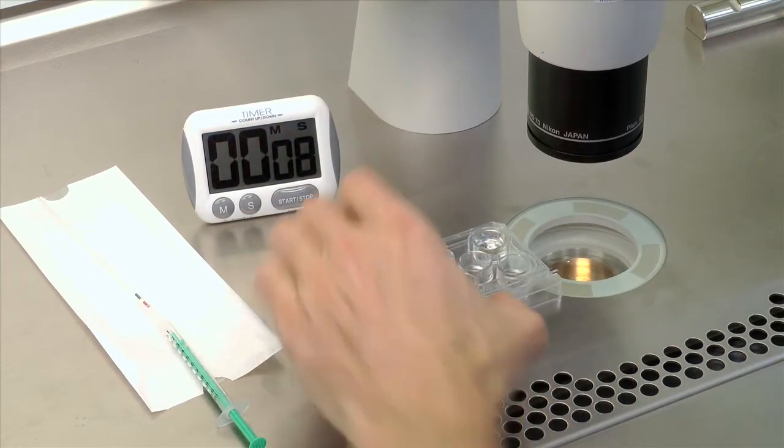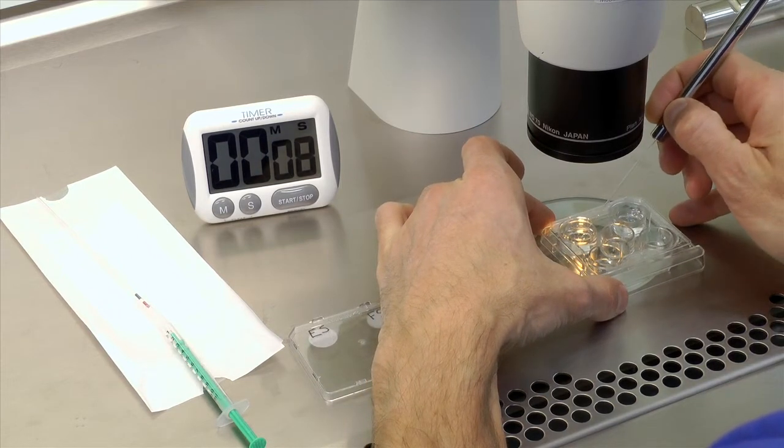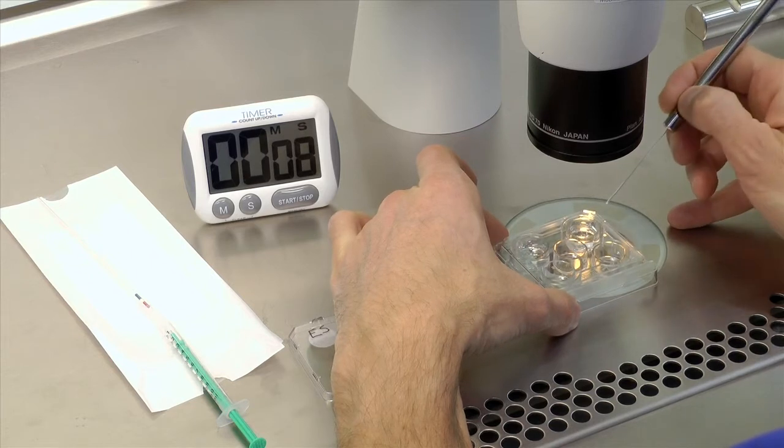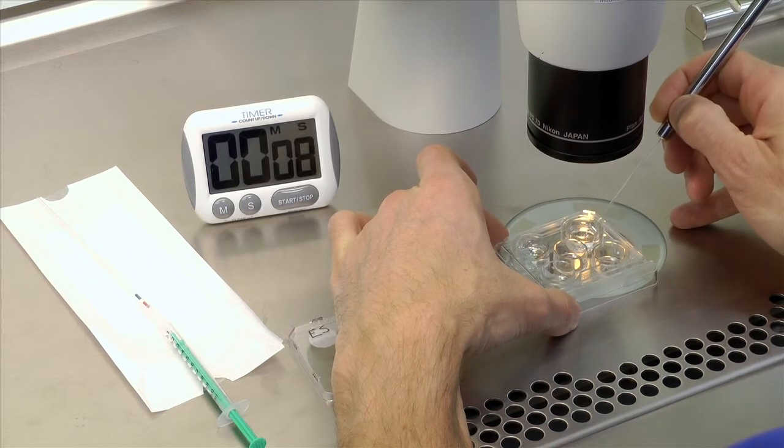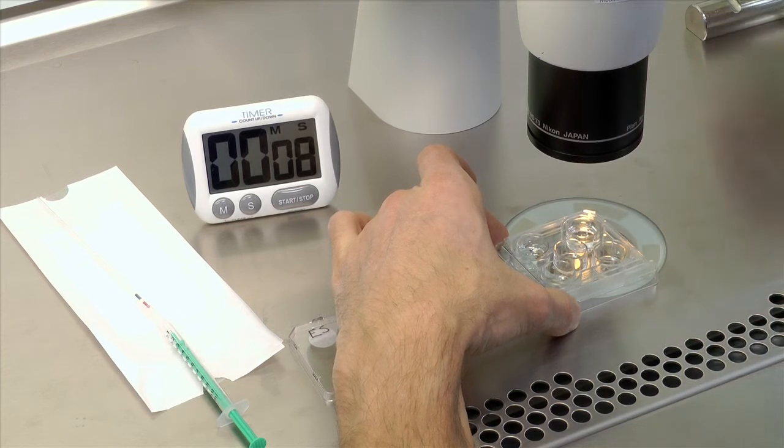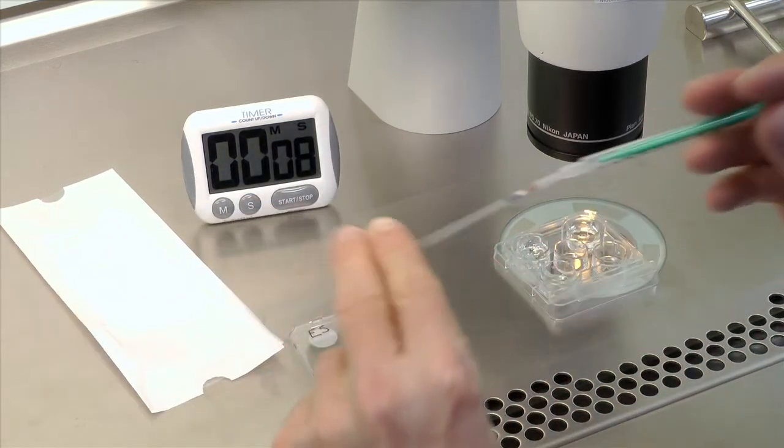Transfer the embryos into the freezing solution and load the embryos into the straws immediately. The total exposure time in freezing solution is 10 minutes.